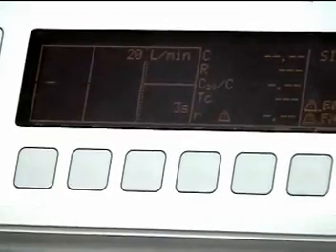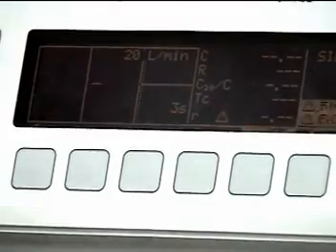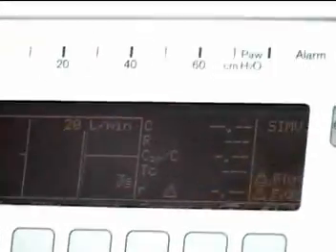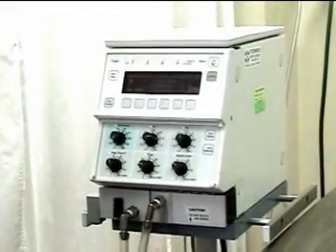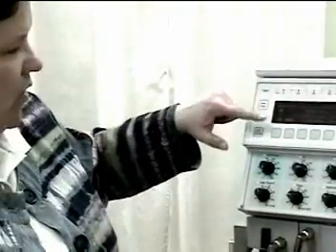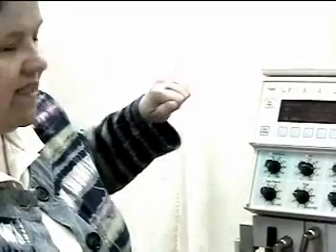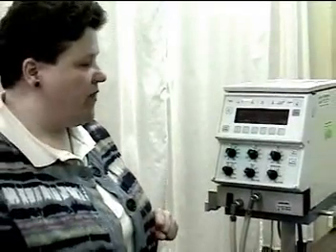When I want to set the alarm settings, I will push the button on the furthest right. If you stand up tall, you will see that there are flashing indicators on the ventilator — a sort of up and down arrow. Those are the alarm settings, and when I push that button, I go into the alarm limits mode. This ventilator will set alarm limits automatically, but I can change those if I choose to. Any alarm limit that has a wider box around it on the screen tells me that is the one I am dealing with at the moment.